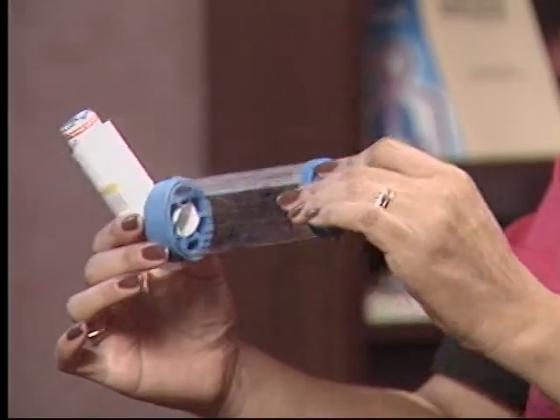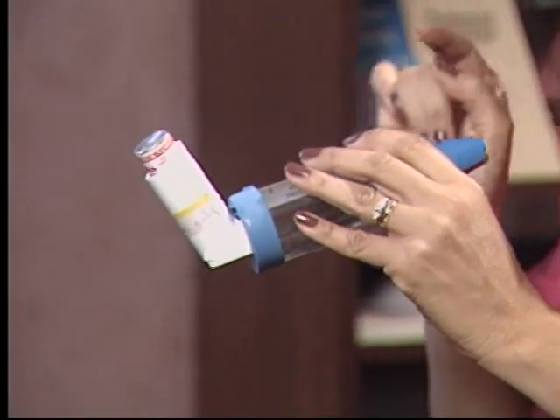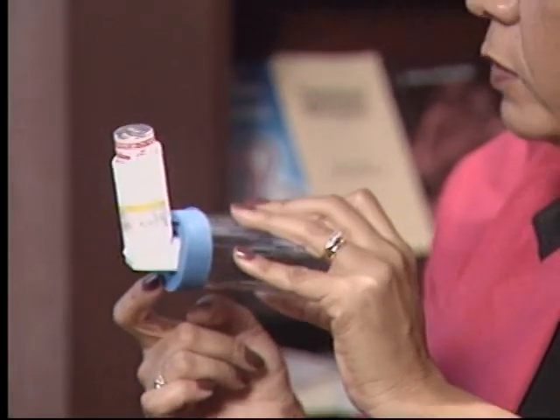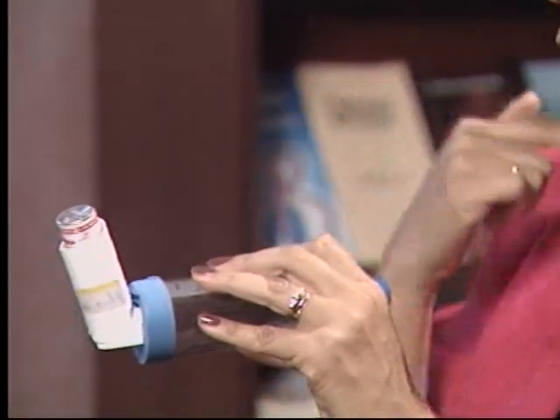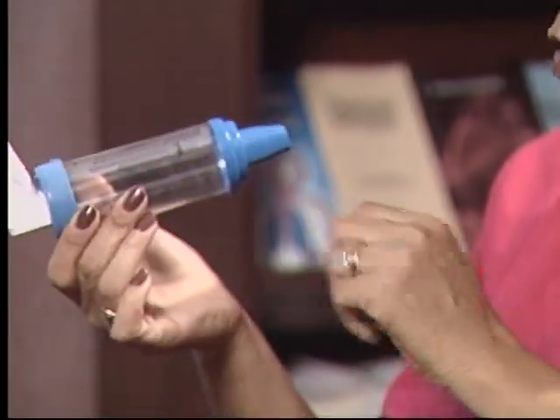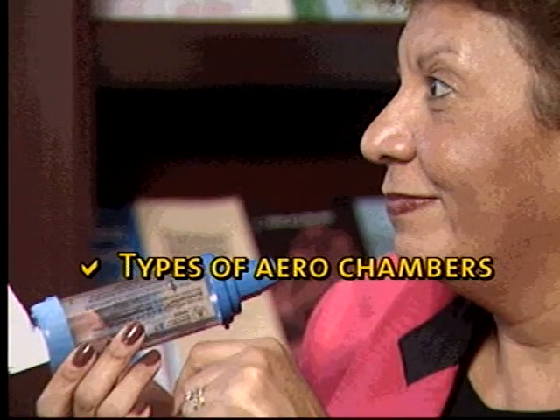When we are using the aero chamber, one step that we have to be very careful about is how we take the single breath, because if we go too fast, a little alarm is going to sound. So when you hear that, it means it's too fast. And then again, the medication goes too fast to the back of the mouth. So we have to do it slowly and deep, okay? Otherwise, you are going to hear this. That means too fast.